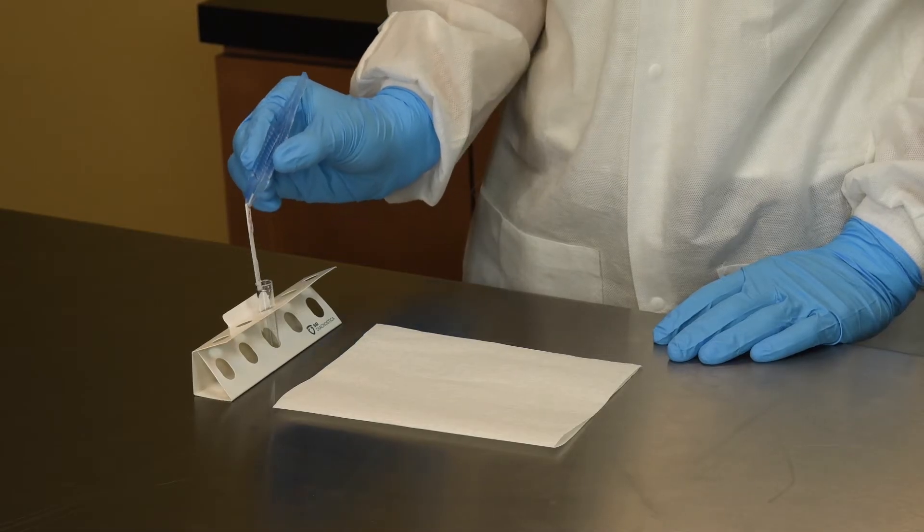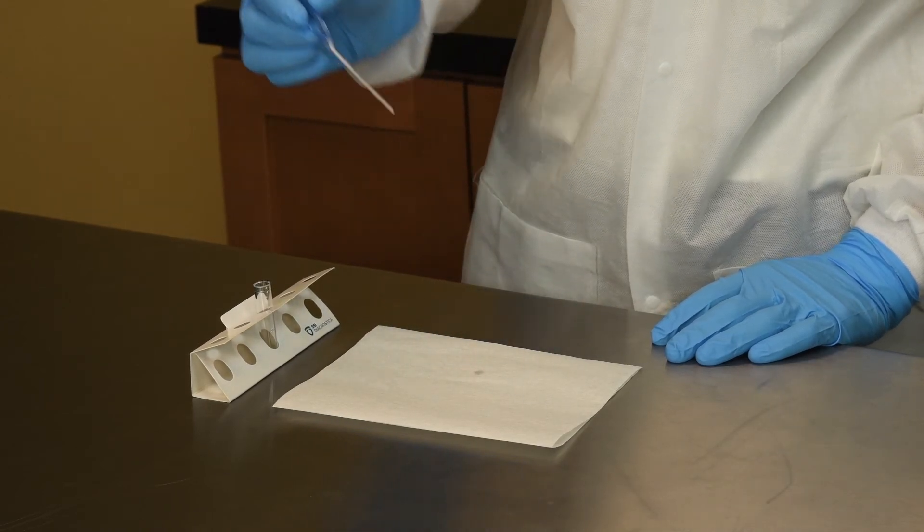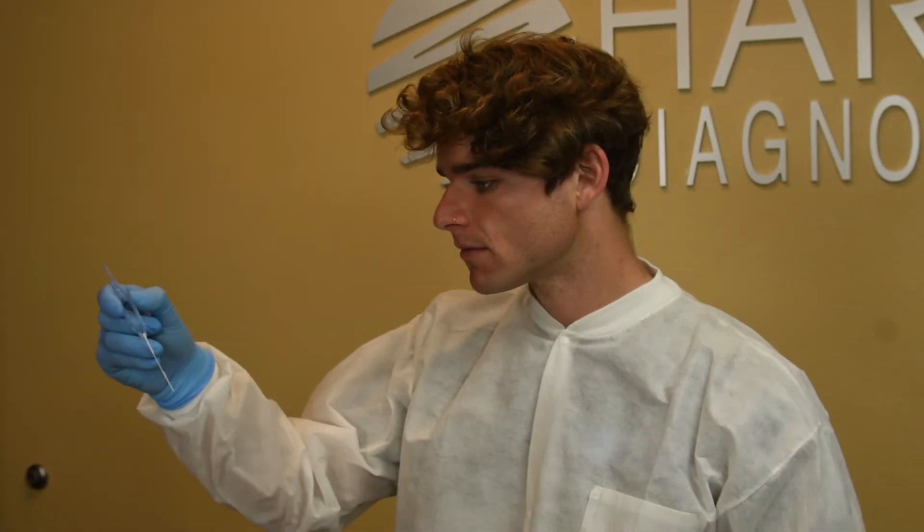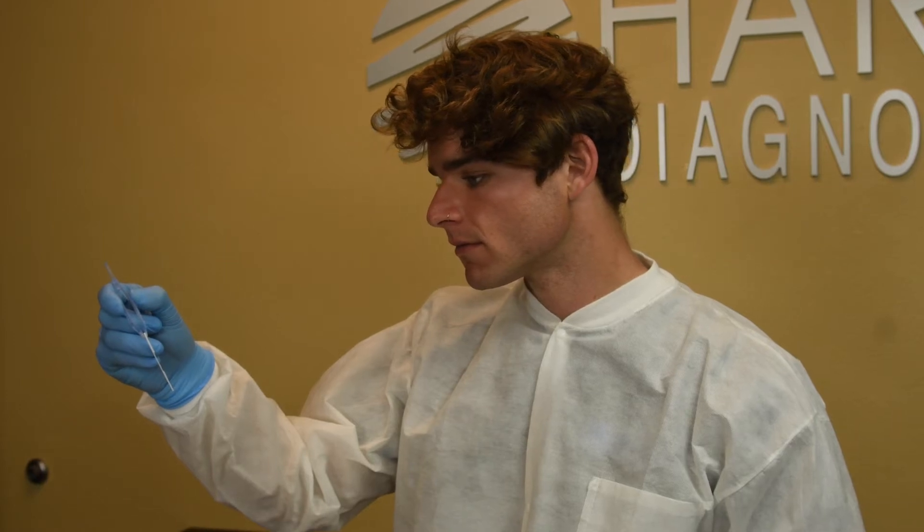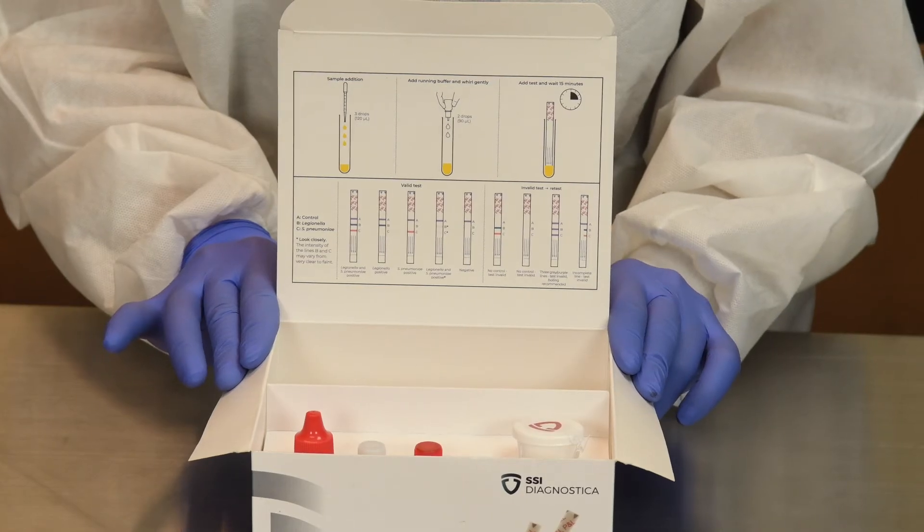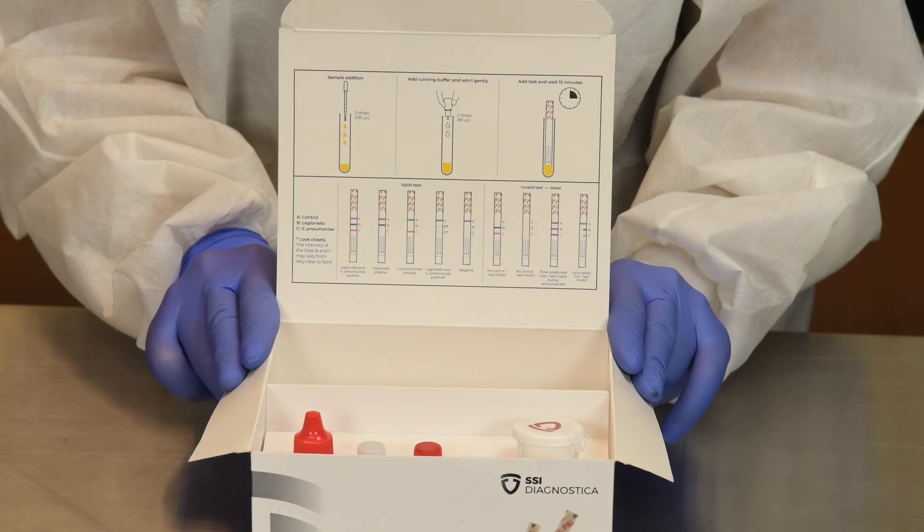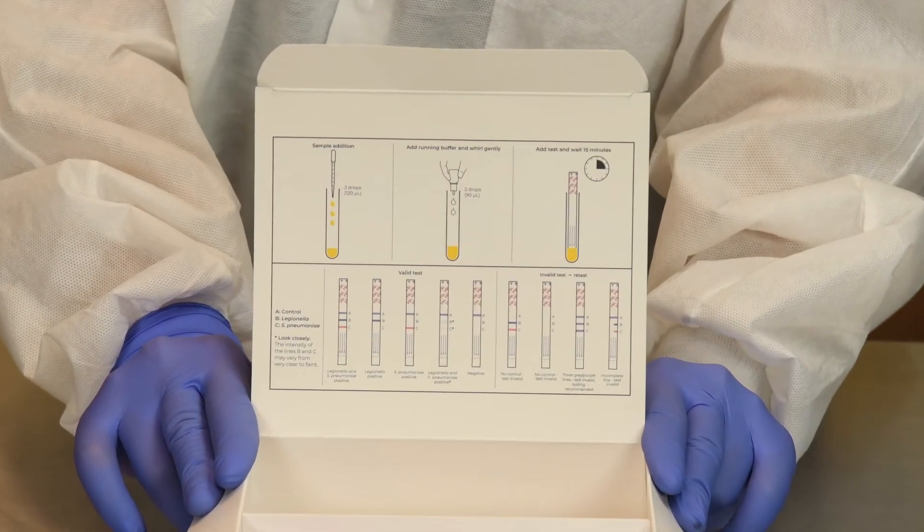Gently lift the strip partially out of the tube to have a clear view of the test lines. The test kit also includes an interpretation guide for the results for your ease of use. The guide is printed directly onto the inside of the test kit lid.